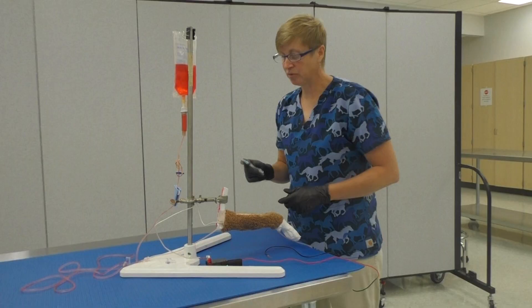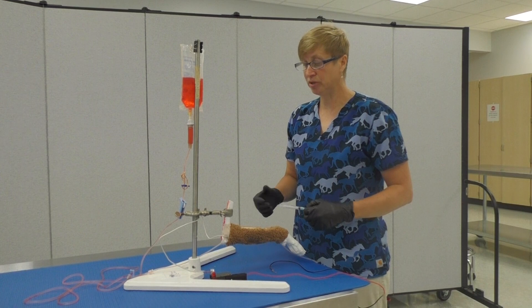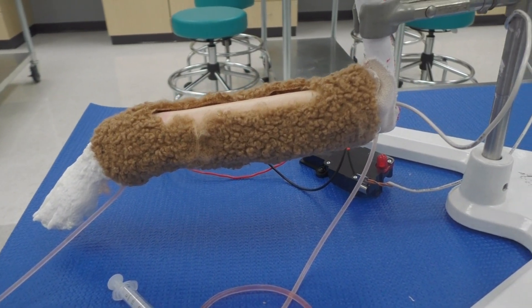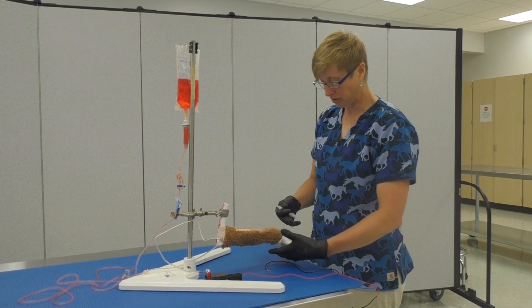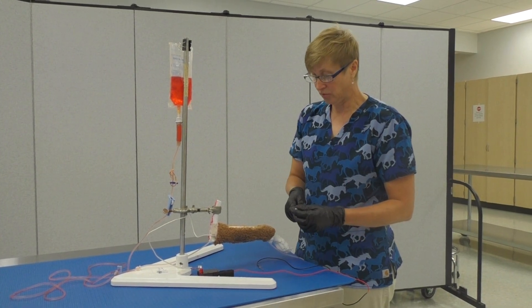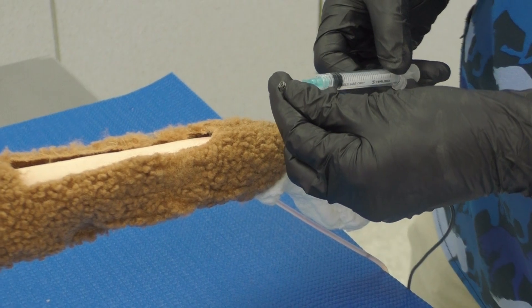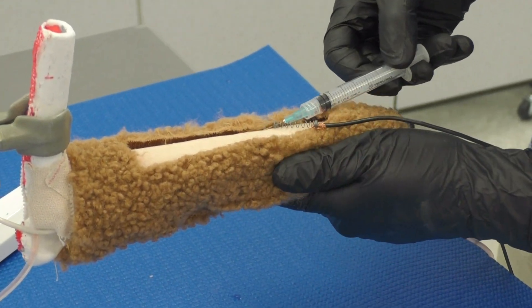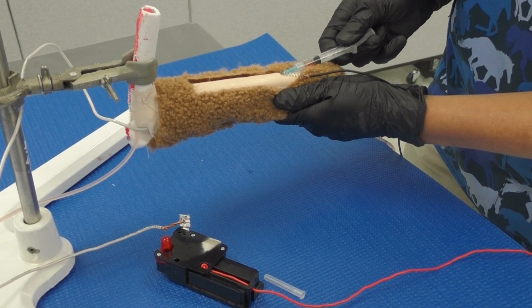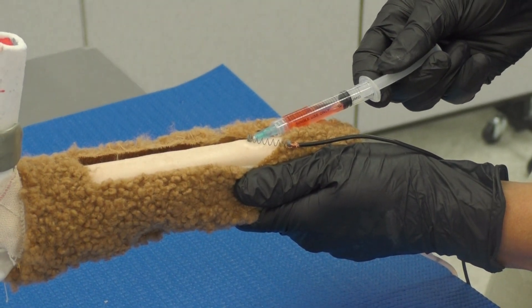This is an IV model that we made for either administering medications, withdrawing blood, or inserting an IV catheter. It's built around a 3D printed limb with a plastic poured paw so it feels realistic — students actually have to restrain the paw adequately. Underneath is an Operation board game circuit board, so when you complete the circuit with a needle and syringe through a small spring, and go to withdraw blood, the fake blood circulates through the system.